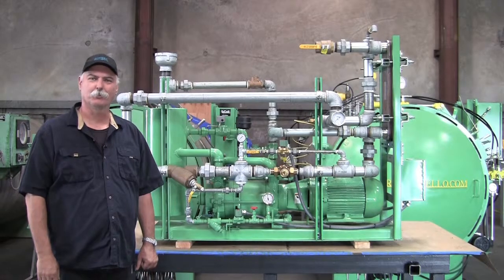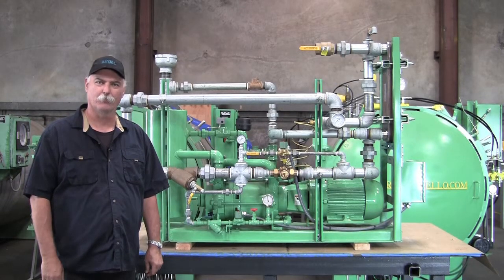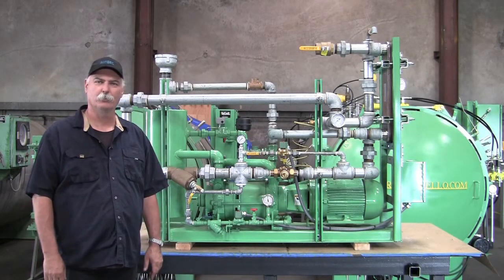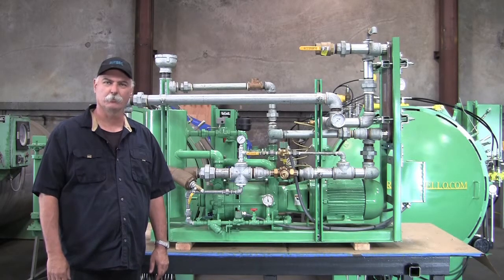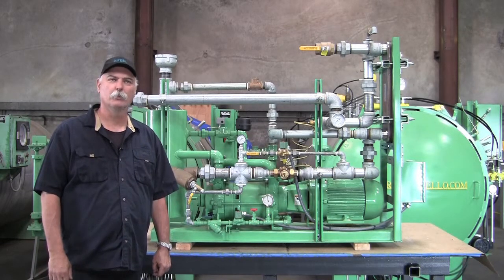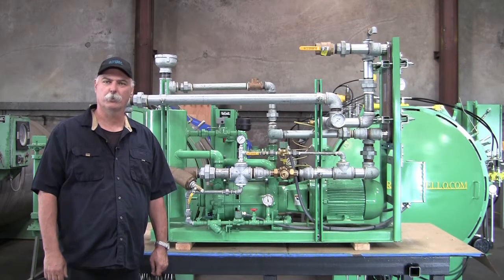Hi, I'm Cory Swan, Service Manager at the Mark Costello Company. Today's video we're going to show you the standard vacuum pump system for our vacuum sterilizers. Behind me is a 10 horse vacuum which is most commonly used on most of our smaller to intermediate size vacuum sterilizers. I'm going to give you a brief idea how this works and the number one issue we see for customers who over long time use need to learn how to adjust them.